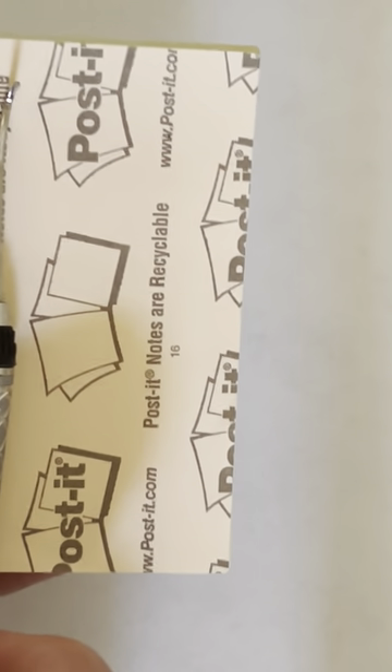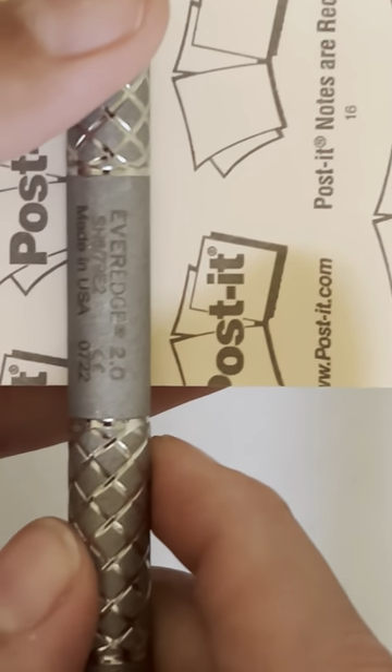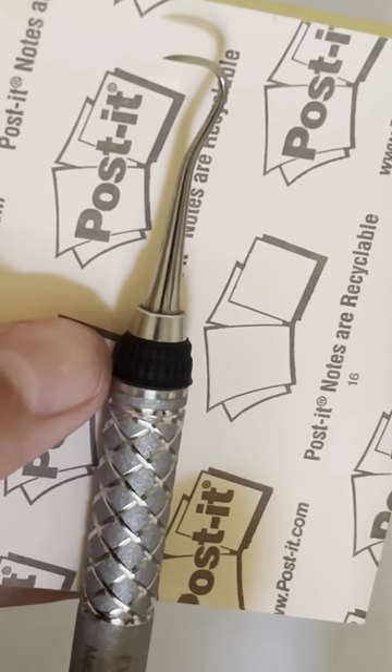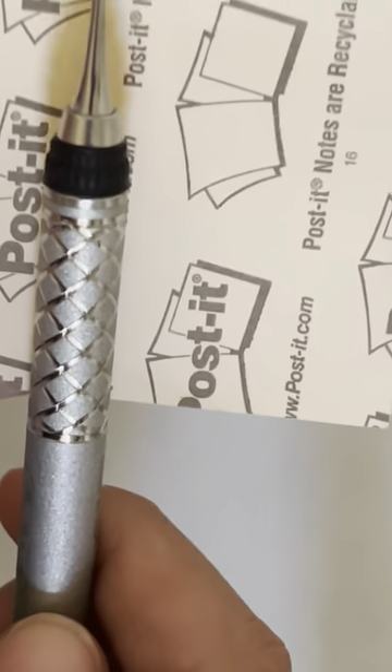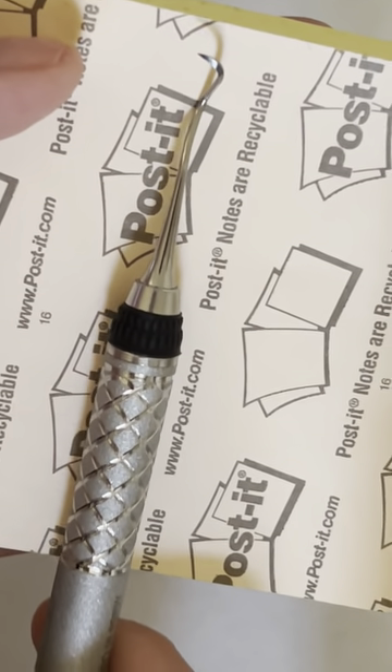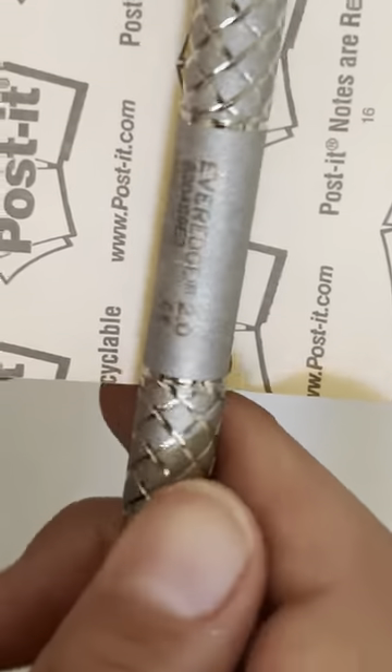Since we already know our assessment instruments, we're going to go with the next one. After assessments would be your H6/7 scaler — that's for anterior teeth because it's a simple shank with a point. Then I'm going to set up my posterior scaler, which also has a point — that would be your S204.